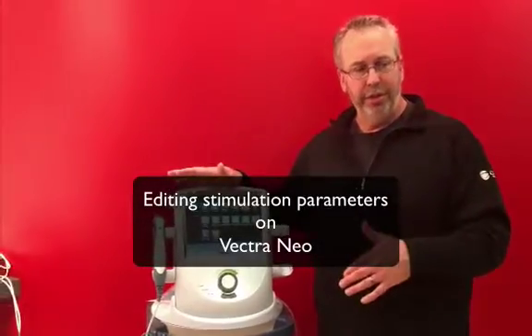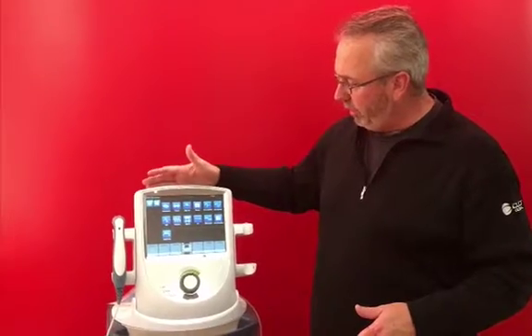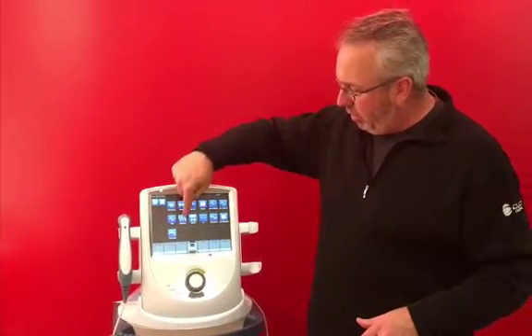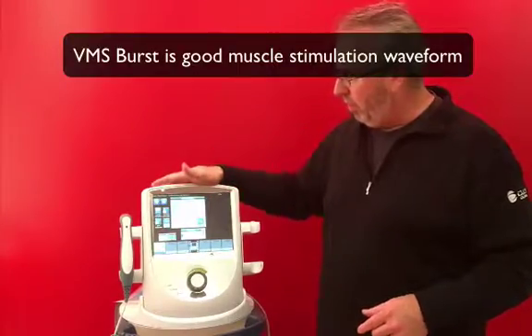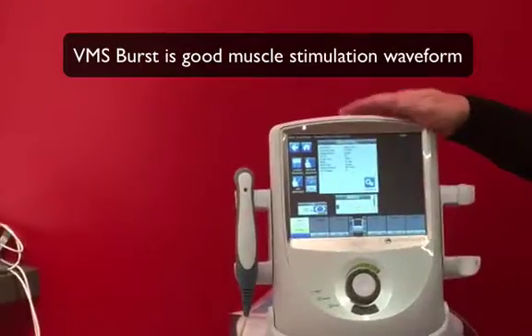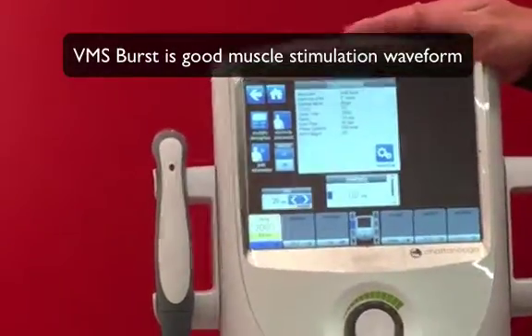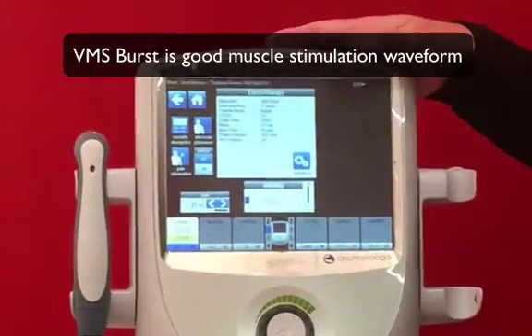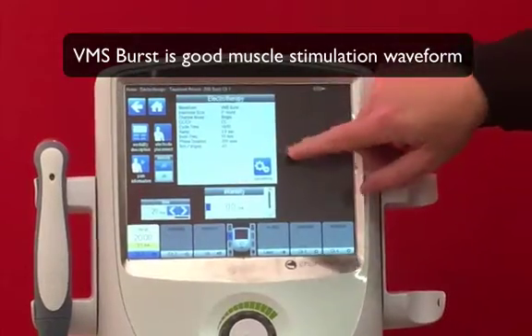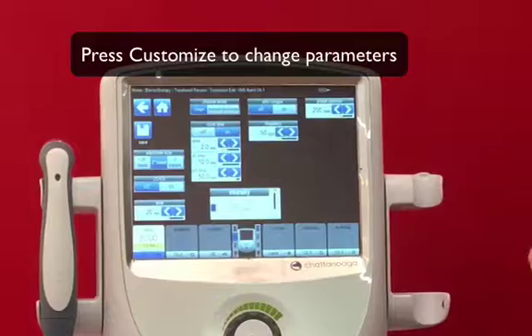This will be a short discussion on setting parameters for electrotherapy. There are a lot of similarities depending on the waveform. We'll choose VMS Burst because it's a very popularly used waveform for a lot of our applications. It has a set of defaults, and if you understand the parameters and look at those defaults, it really says it has something to do with muscle contraction — which is what VMS Burst excels in. To make changes, we hit the customization button.